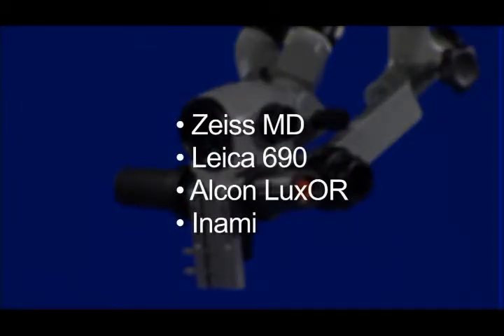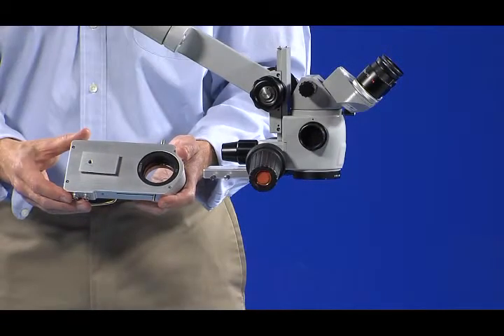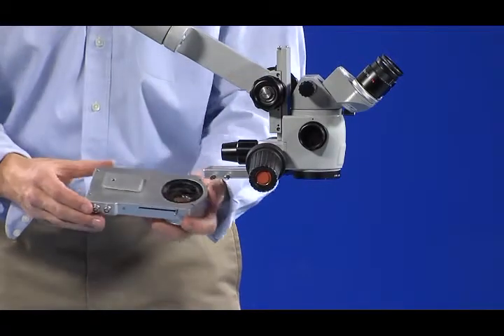Some mounting kits require additional steps to complete their installation. These specific mounting kits include detailed instructions for installation. Next, you will insert the CLA dovetail into the adapter plate.